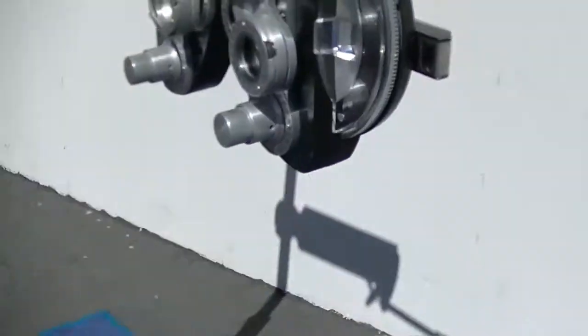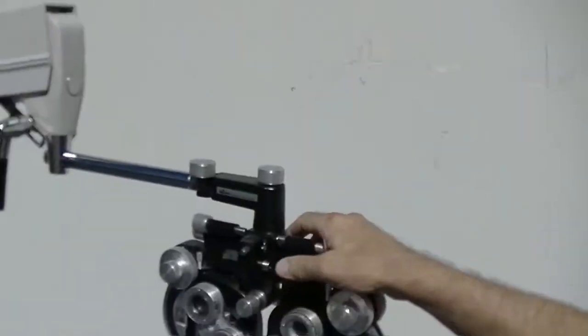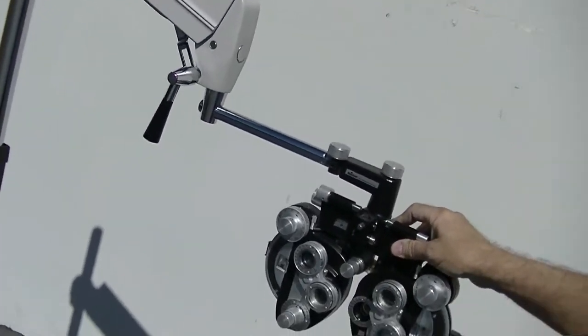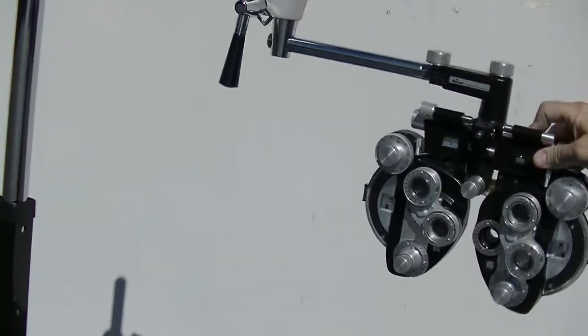The unit is very stable — it will not come over at all. You've got a great range; you can always lower the arm down and move it up and down. You can probably see the movement on the shadow there too.